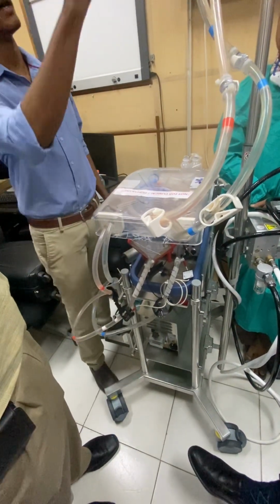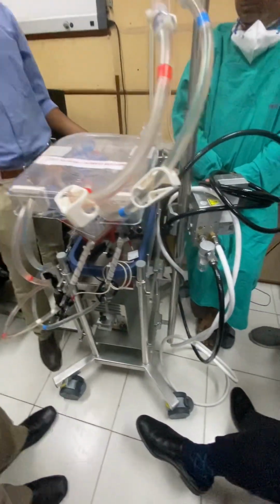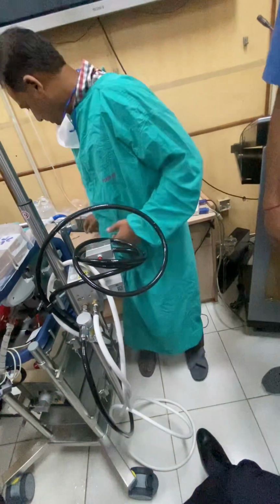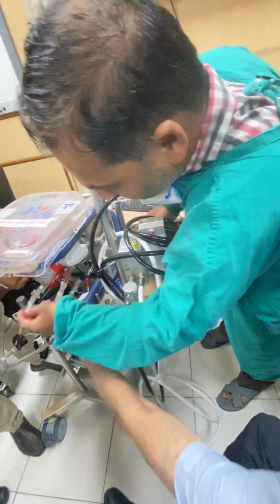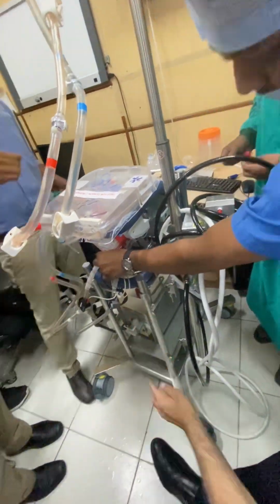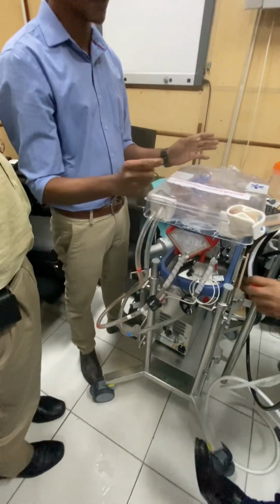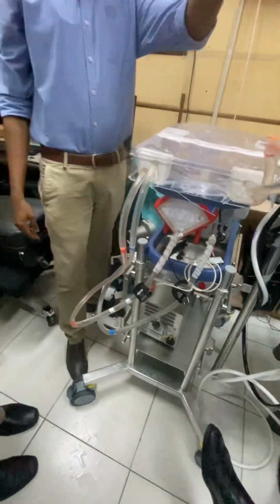And what you can see is that... Do we switch on the machine or something? The machine is already on. We have checked the back. Can I get a 3-way cap? A cap. Not an issue. I forgot to put one cap. Actually, all these caps will come inbuilt at the start. I removed it during previous training. Okay. This one.